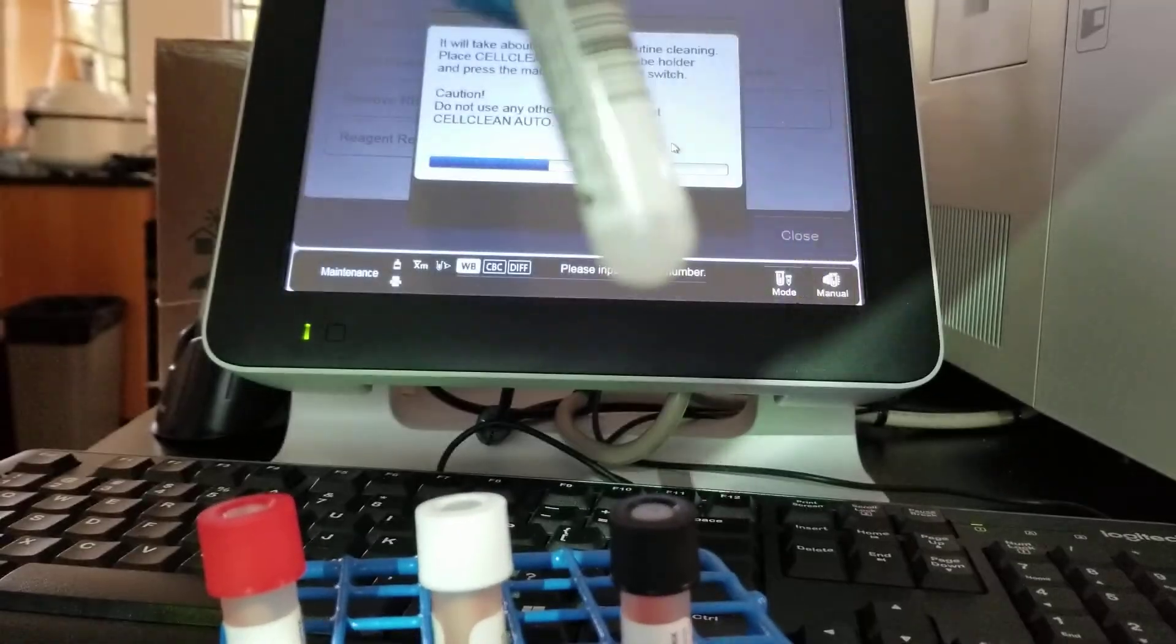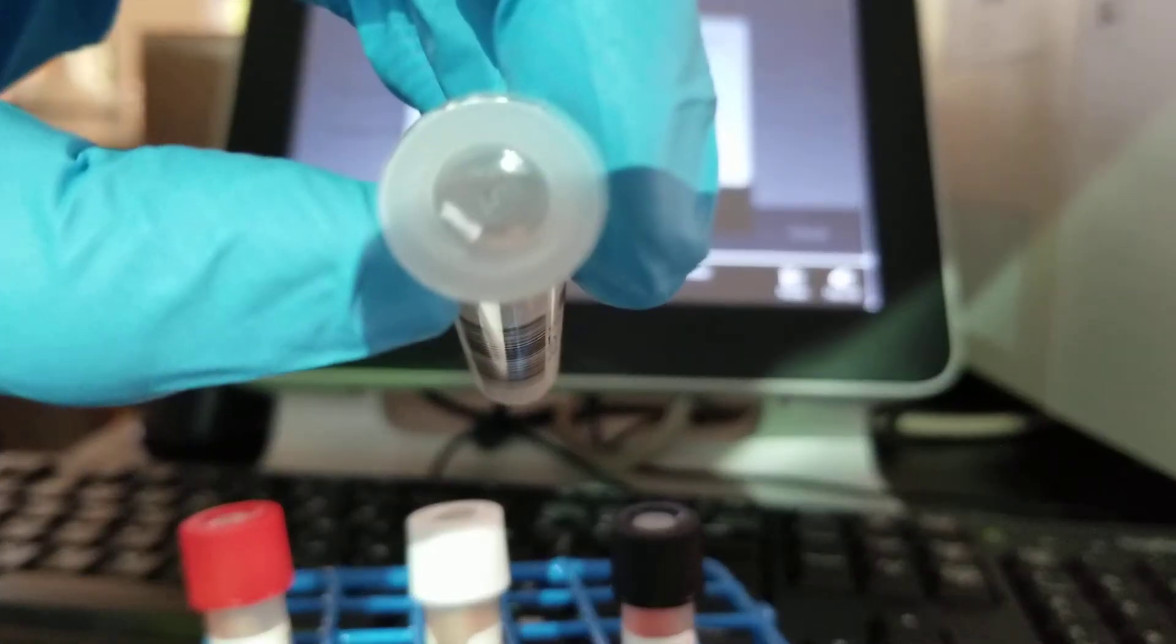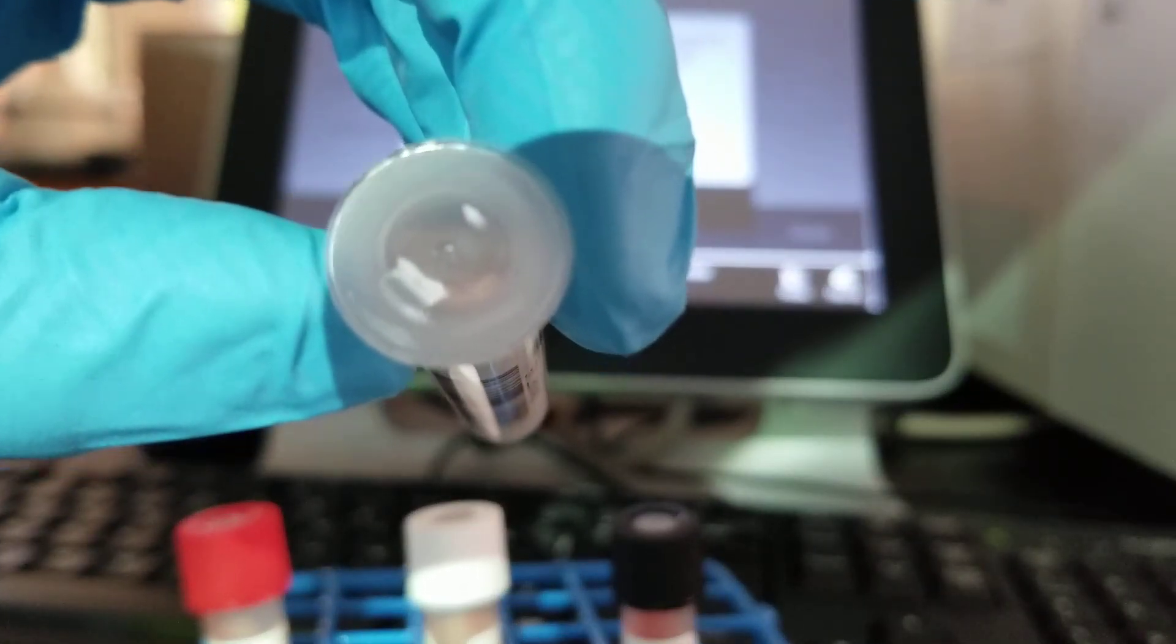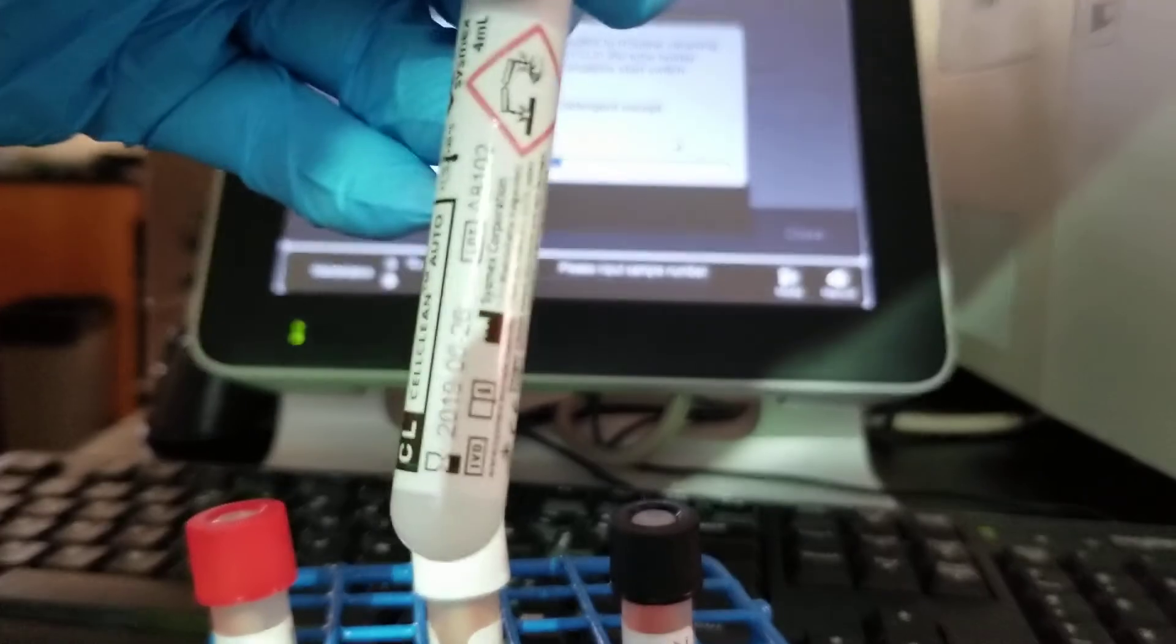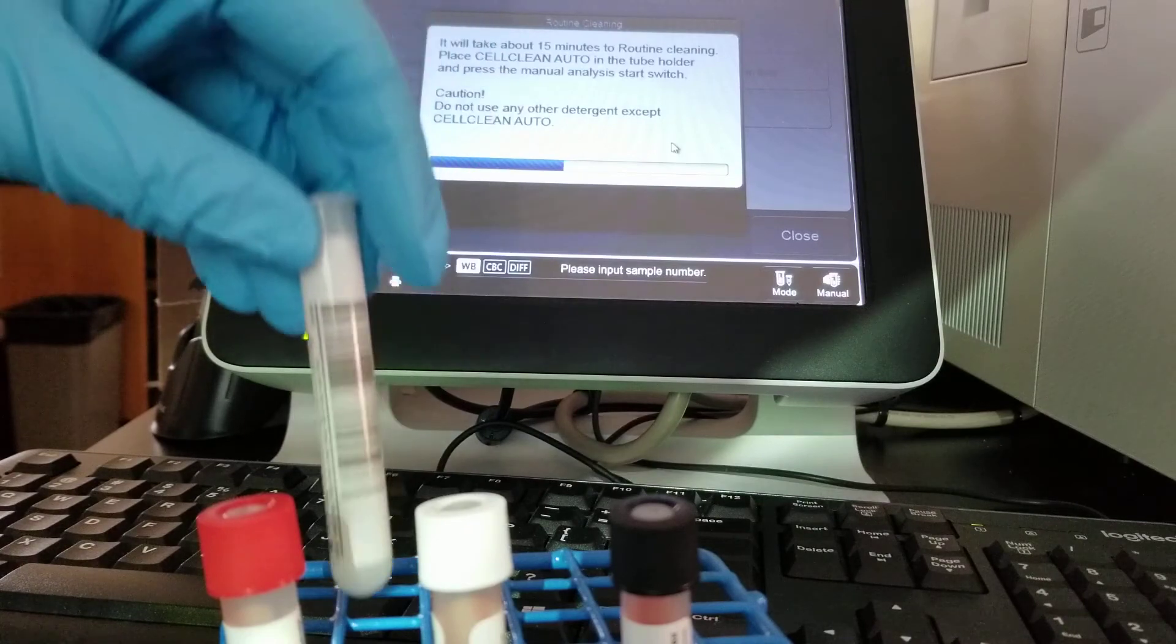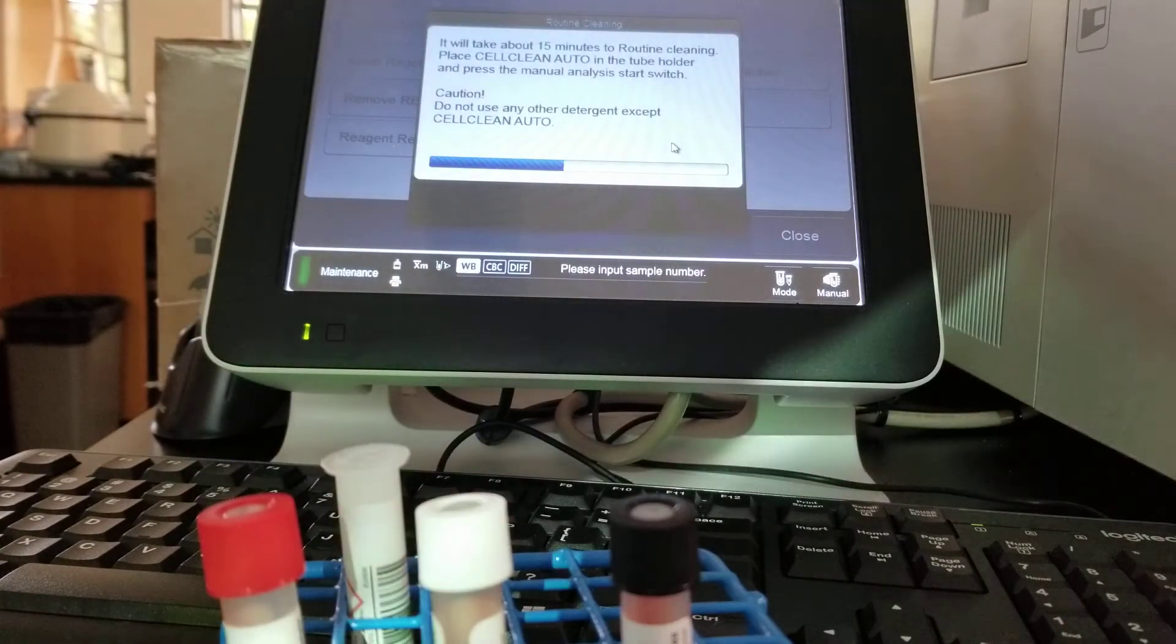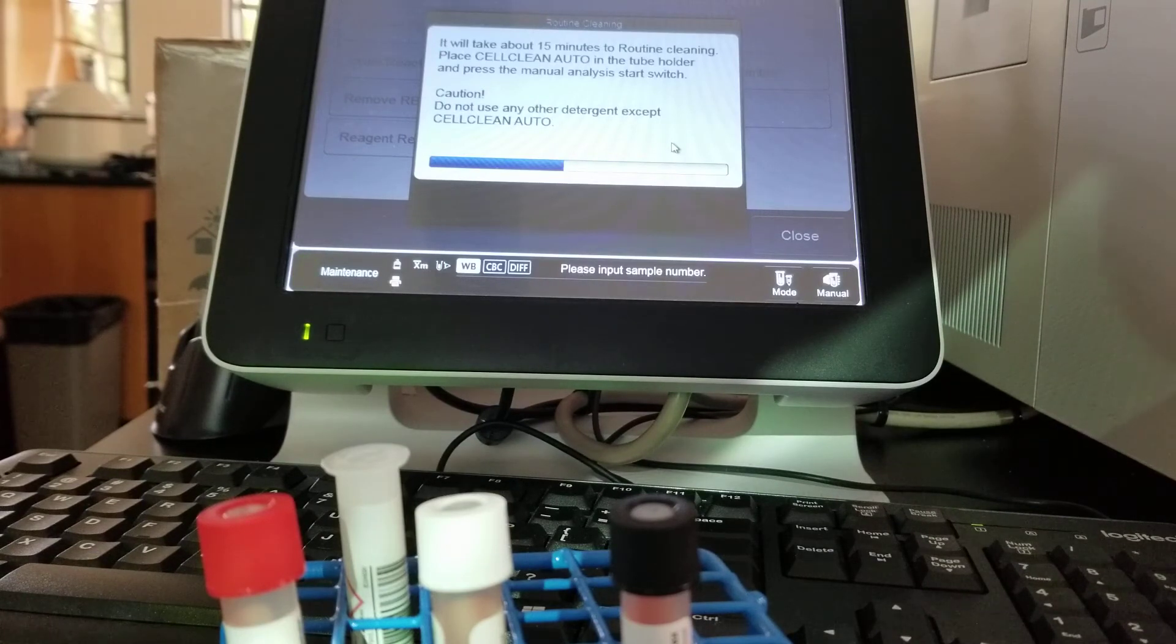Another thing I'd like to mention is that this cell clean auto tube can only be used once. If you try to use it again, there's not as much reagent, or bleach rather, left anymore. And so all you're going to do is have an issue with maybe bubbles in the line or not enough solution going through to get rid of that buildup like you would want.